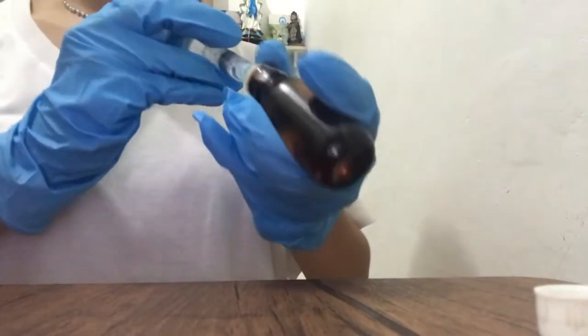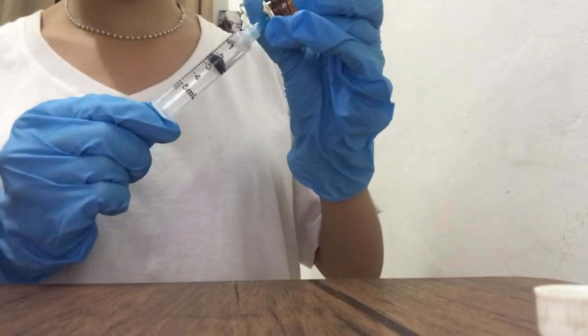Insert the syringe into the second vial and total both medications summed together.